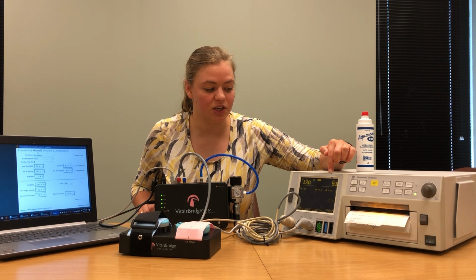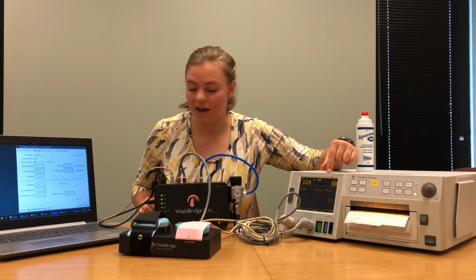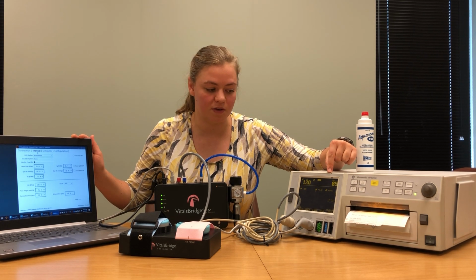We'll just wait for this contraction to proceed. Coming all the way up to a value of 70, which is what is set in our software. But you'll notice it's going higher because we don't have the correct reference value.